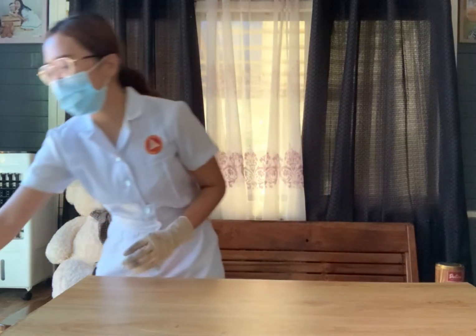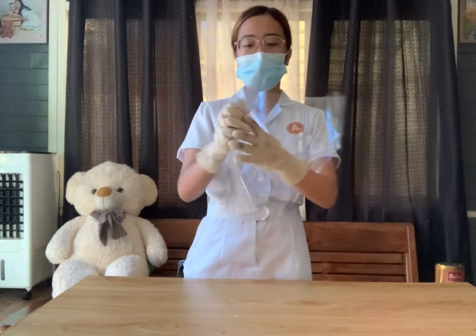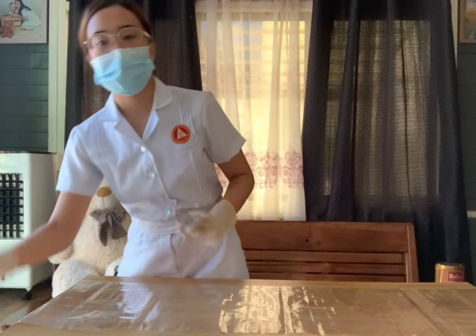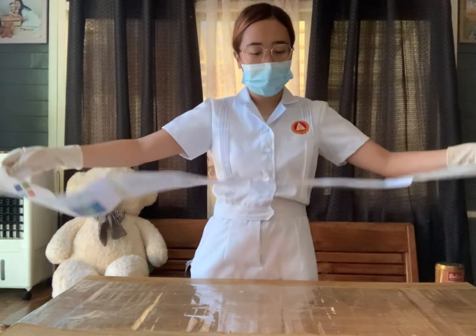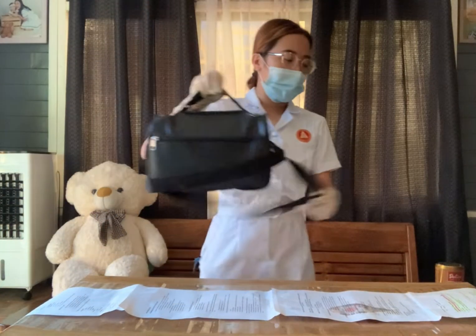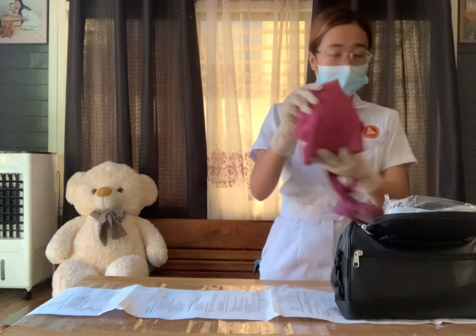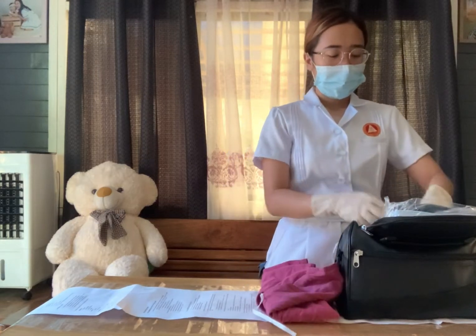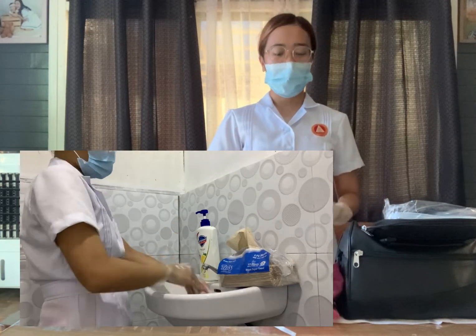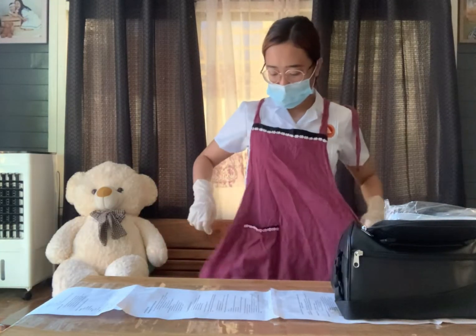After that, place the plastic lining above the table, making sure the placement is clean side out. Then place the paper lining above the plastic lining, making sure the placement is clean side in. Place your bag above the paper lining and open it. Take out the apron, soap, and towel. Perform a thorough hand washing, dry your hands, and put on your apron — right side out.